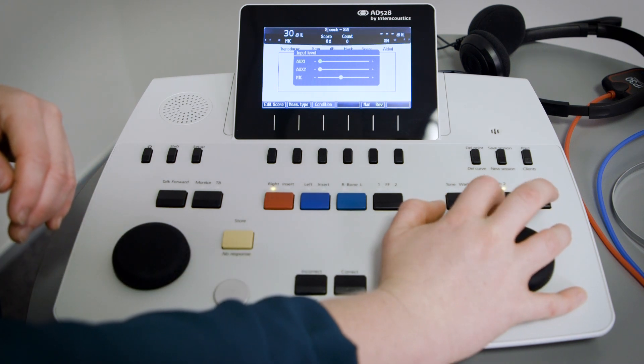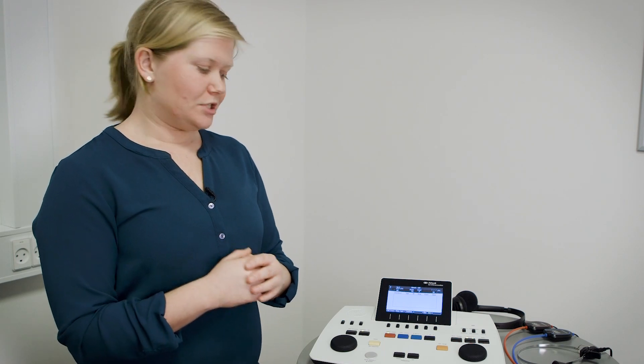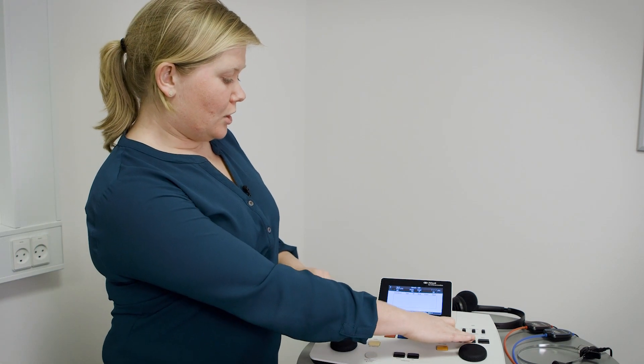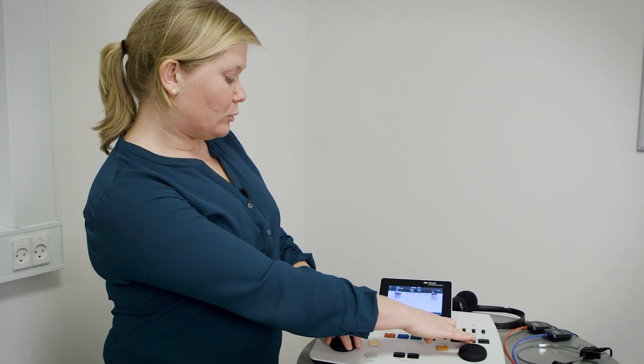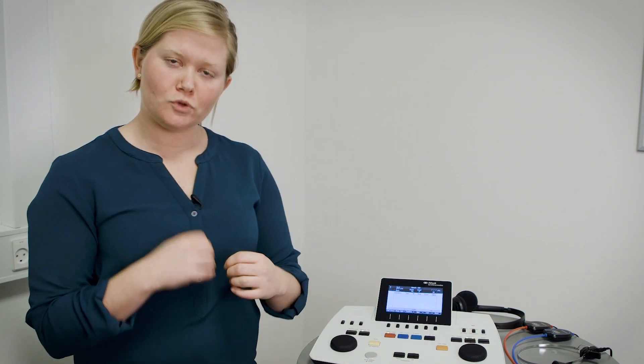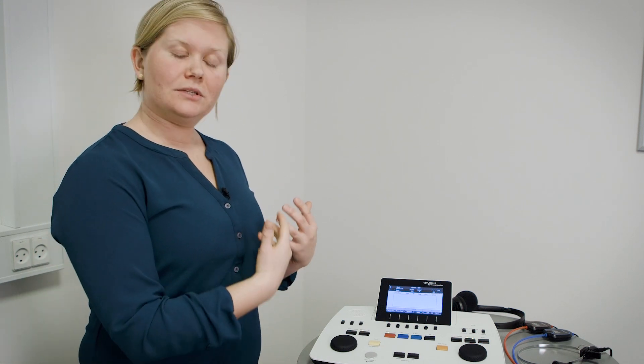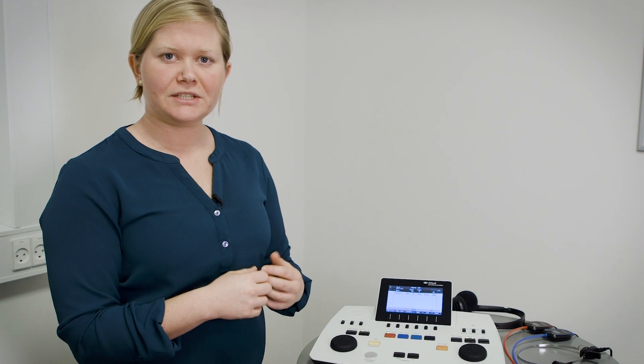I'll now show how to get started when all of this is set up and how you are now ready to use your speech audiometry. The example I will show would be by the use of the WAV files to get you through some of the functionality, because when the material is built into the device there are more things that we can do with the material while we do the speech audiometry.